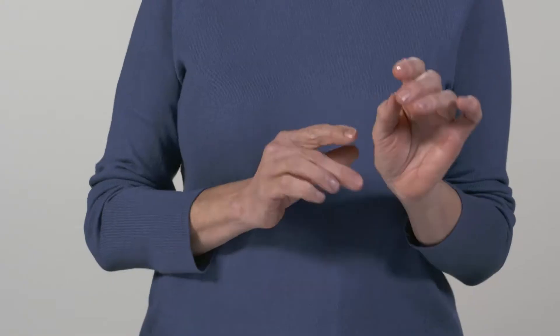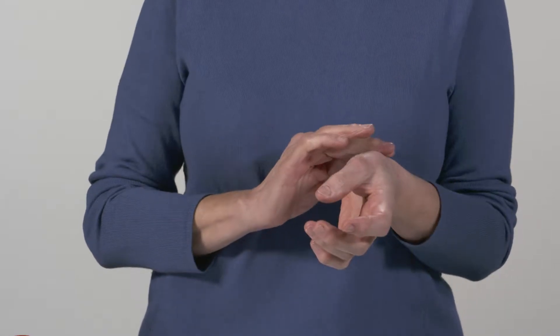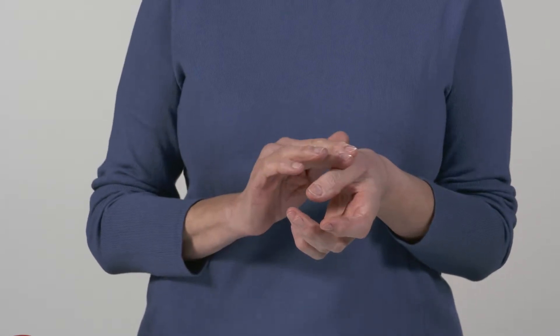If you have thin hands or prominent bones and you're feeling as though the CMC Care is a little hard on the back of your thumb, you can add soft silicone gel pads inside your CMC Care brace for cushioning and comfort. Let me show you how to do this.